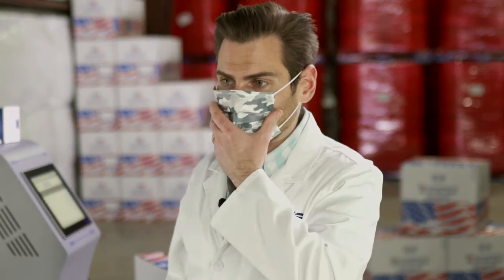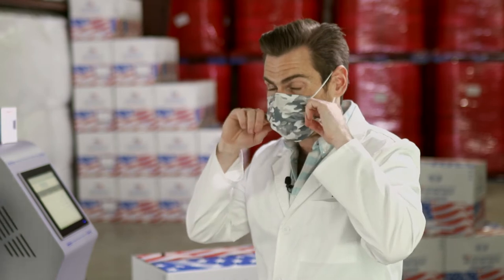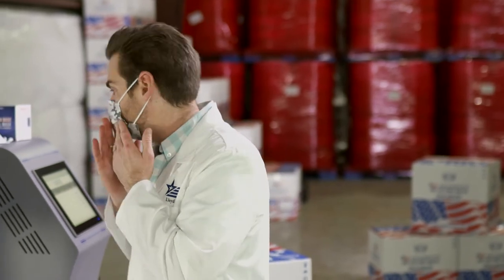That's too big. So if you're gonna get this — and I have a pretty big head — if you're gonna wear this thing, you're really going to need some sort of secondary device to hold it in place, because the ear loops are just way too big. You don't want this gap; this gap is too much. This is not a good fit.